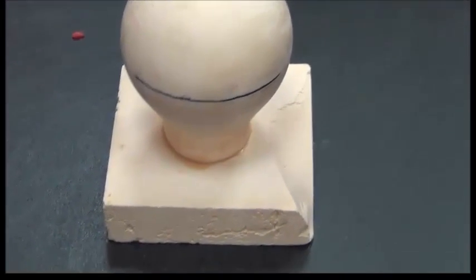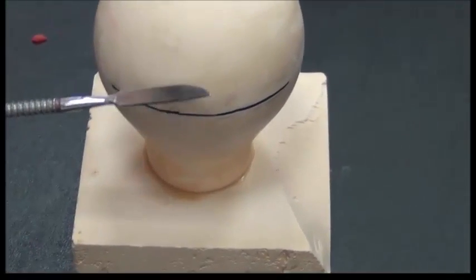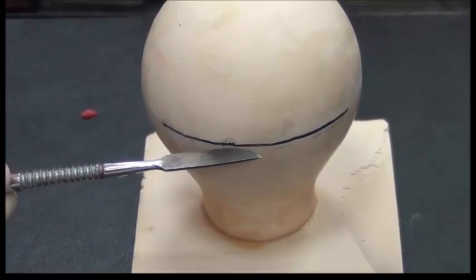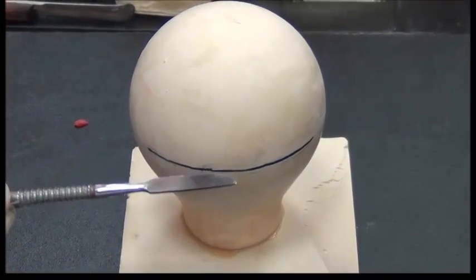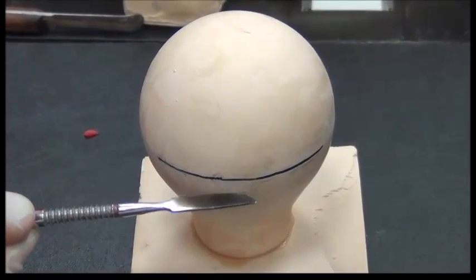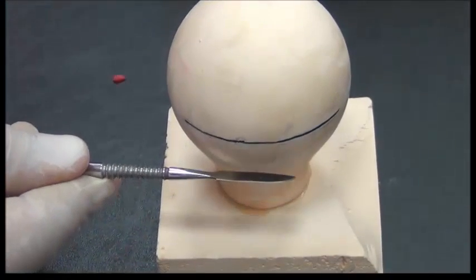This is what we call the survey line. It is automatically located on the maximum bulge of the tooth. Now I could specifically and confidently say this is the maximum bulge of the tooth using those instruments. Anything below this is the area of the undercut, hidden from the vertical path of insertion, and we could utilize it.